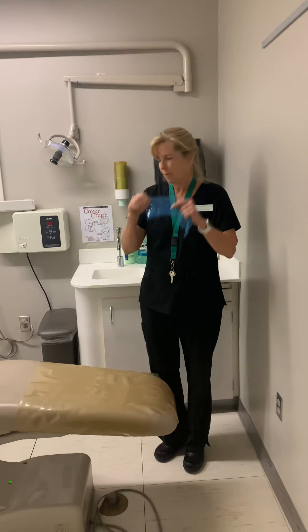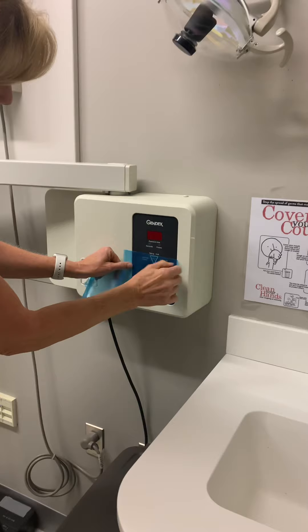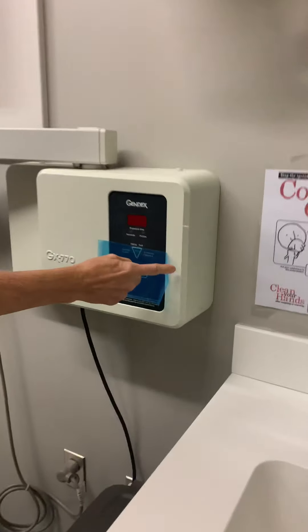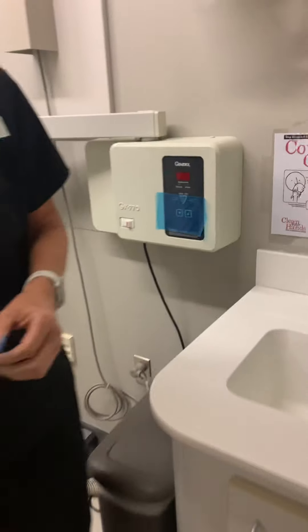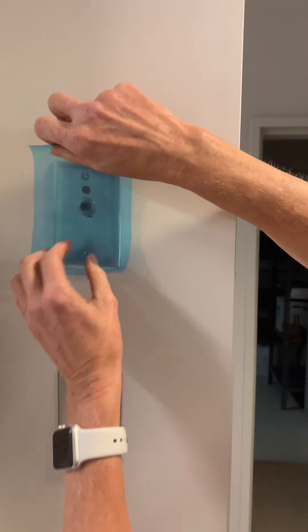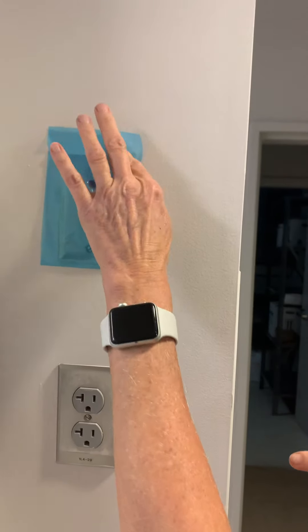One of these coveralls is going to go on the unit over the buttons. You don't want to stick it too well — you notice she has a little lip on it right here, which will make it easier to get off. And then we're going to put one out here on the switch, same thing, leaving a little lip on there so she can get it off later easily.